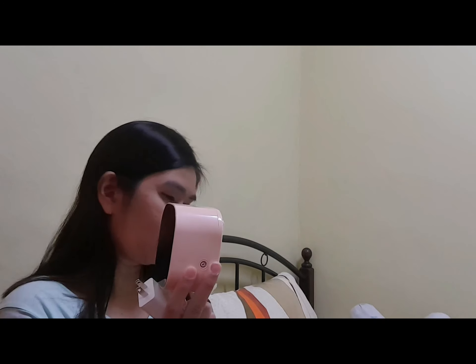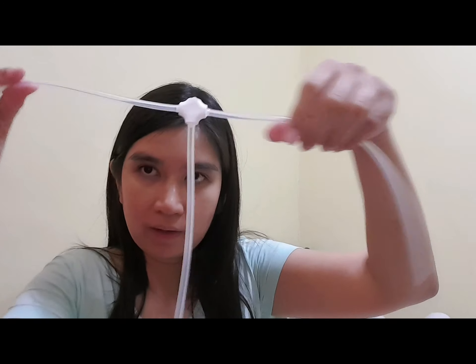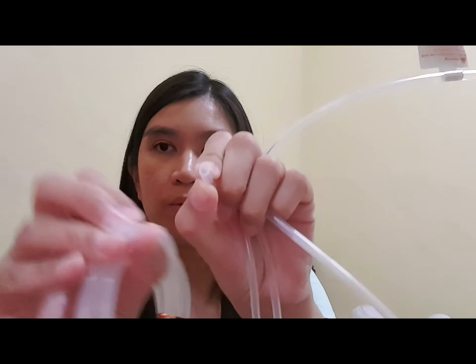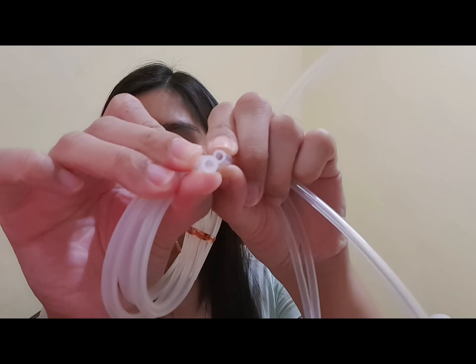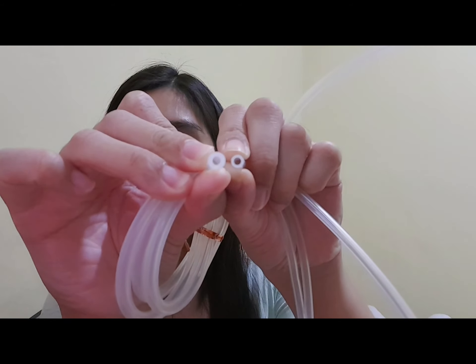You can use Spectra tubing for this one if you want a single pump. If you want a double pump, it also has its own tubing included — this is its tubing. This is my Spectra tubing and this is the Baby Bow tubing. The Spectra tubing is thicker compared to the Baby Bow tubing.